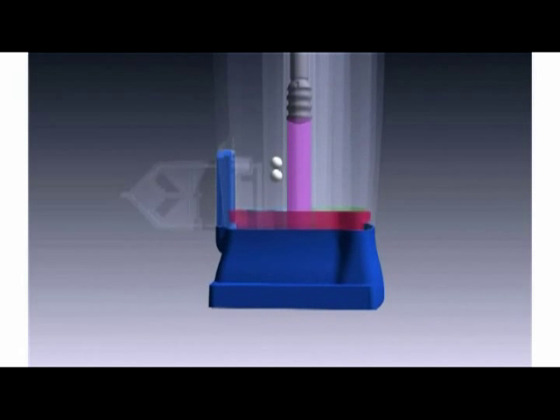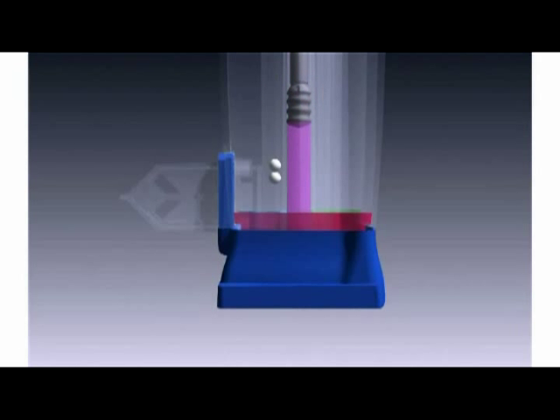The piston again rotates to position five and pumps the solution into the reaction tube at the back of the cartridge.